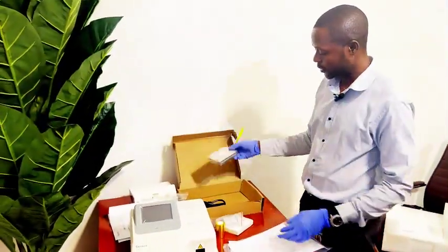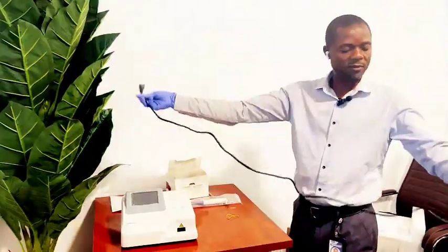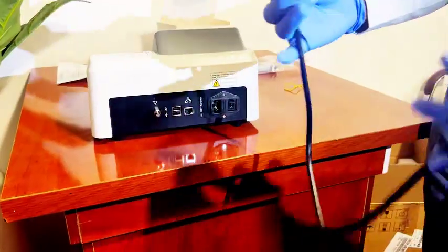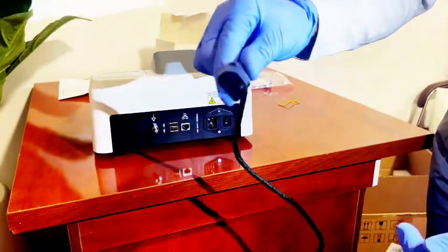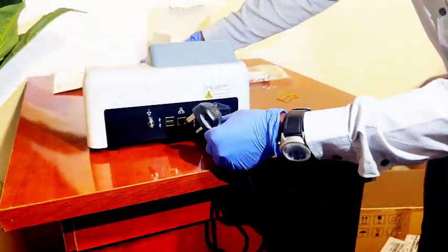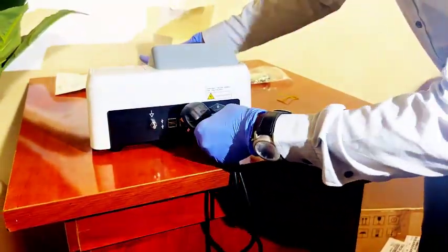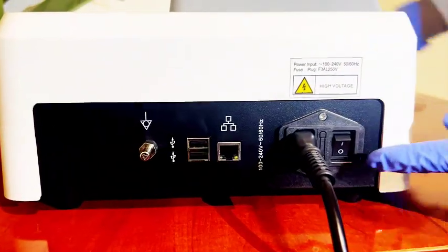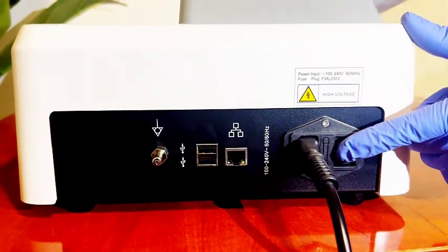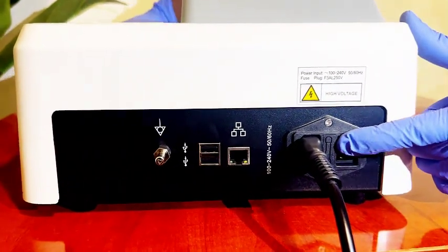This is the back of the machine. This is the switch at the back of the machine. Turn it on.